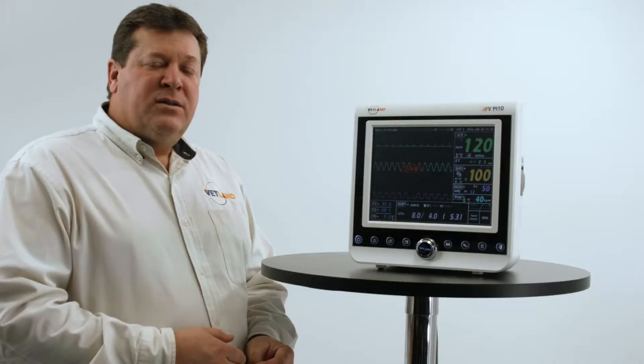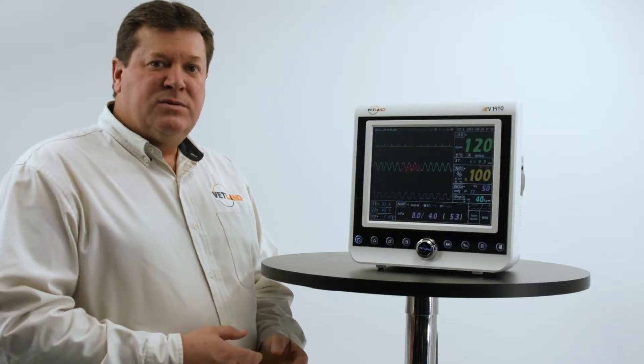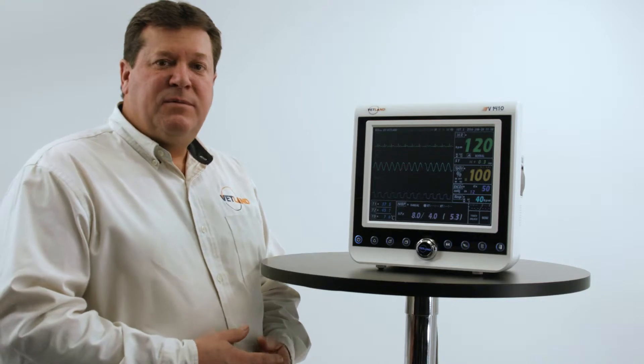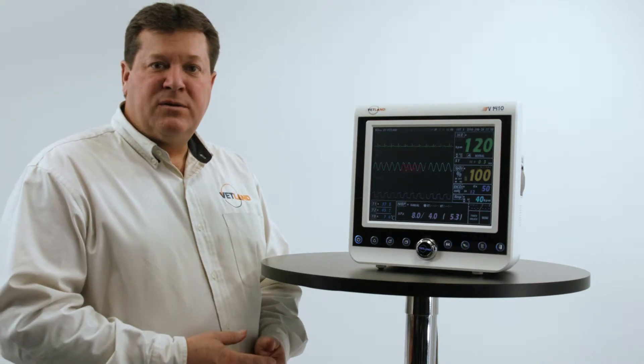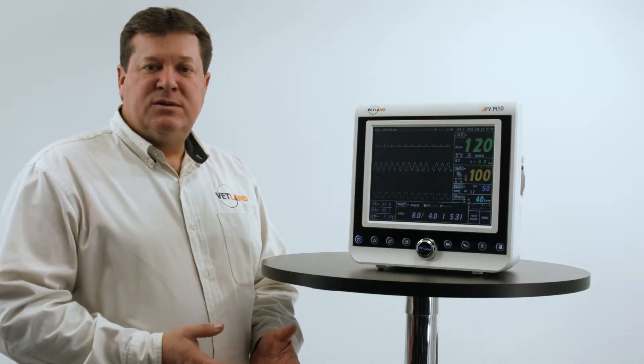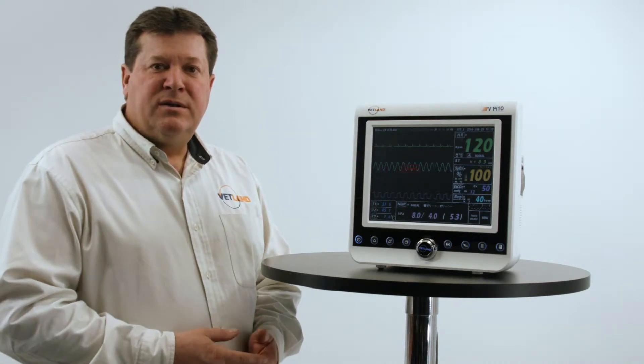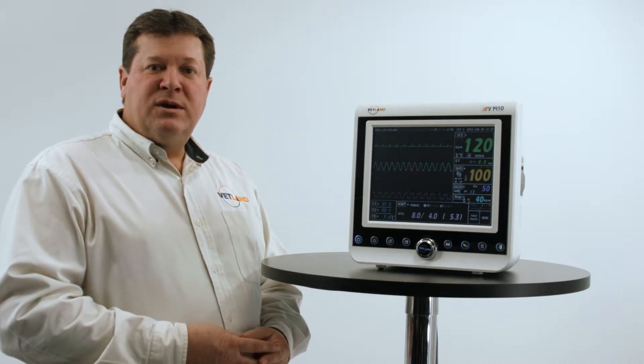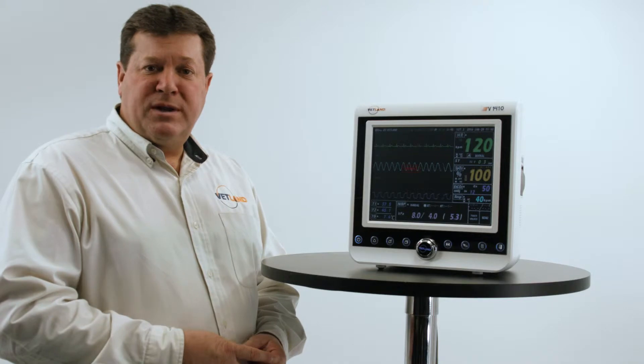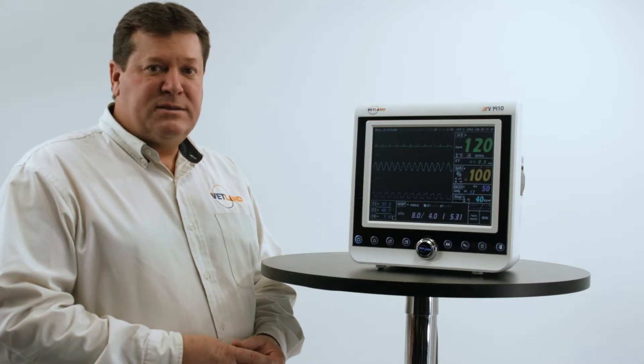It also comes with an SD card and ability to have seven days of trending saved. All the patient data is available to a laptop for your patient records, as well as you can email an ECG wave for interpretation and analysis. It has the smart care system, which allows it to be viewed anywhere in the world on a smart device.